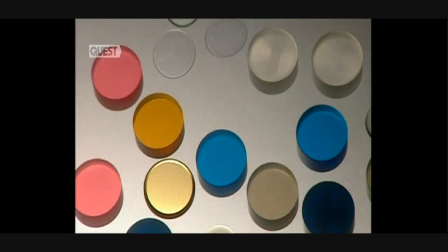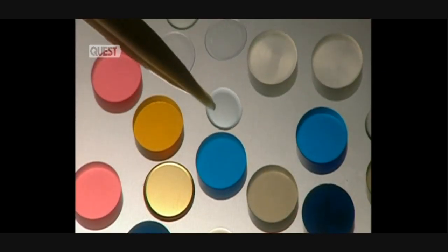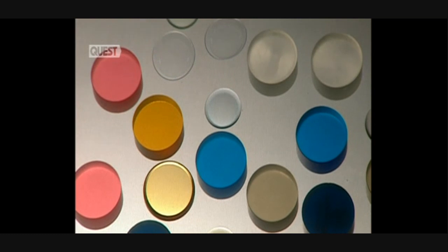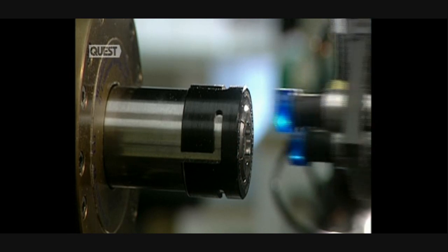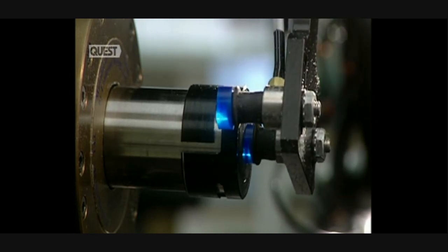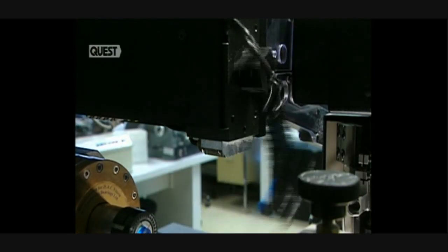Contact lenses have been in existence for over a century. At first completely rigid, they have become as flexible as gelatine. These small discs are used to make soft polymer contact lenses in a variety of colours.